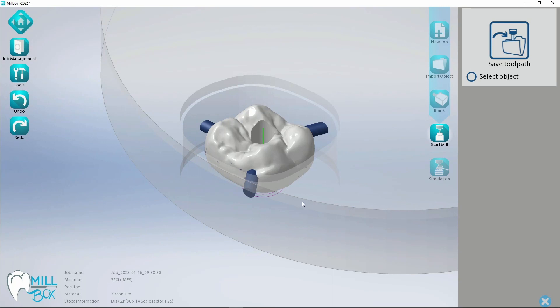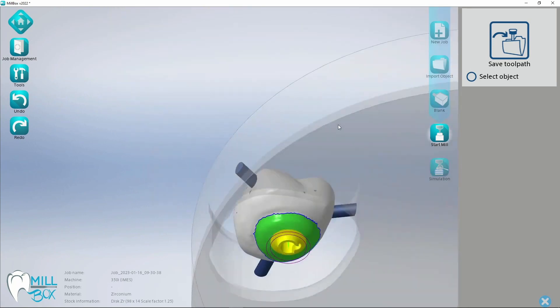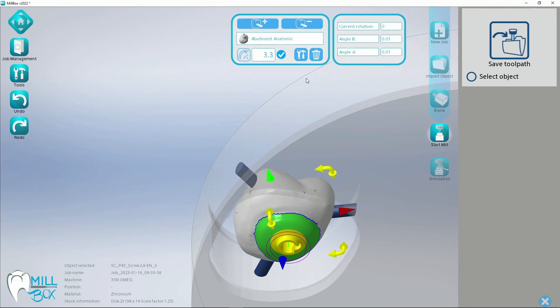Please increase or decrease the allowance of the connection in the software. Click on the connection and go to settings.